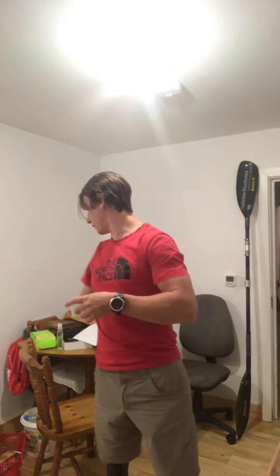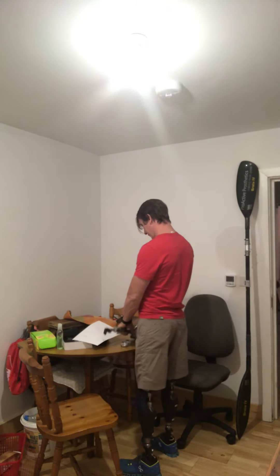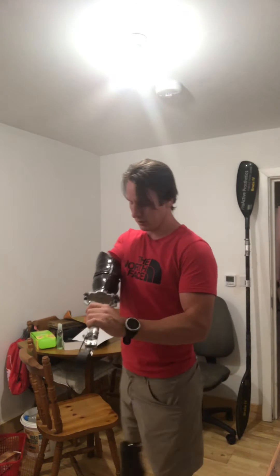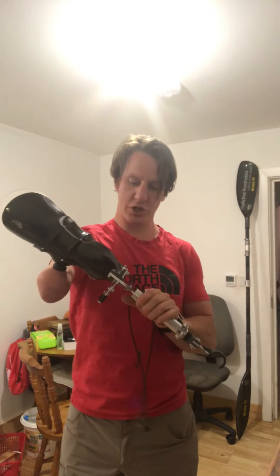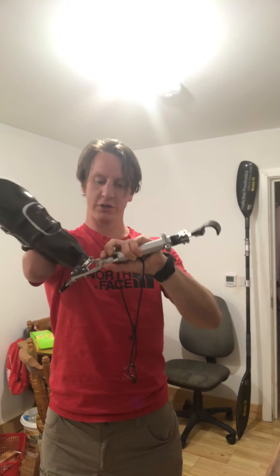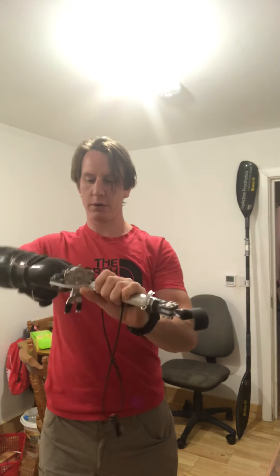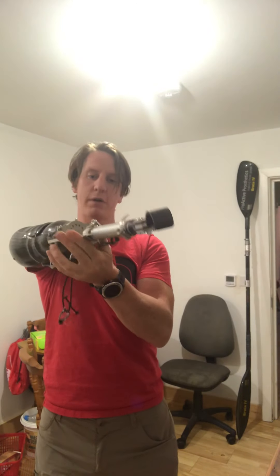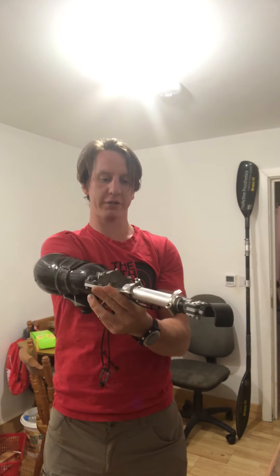Oli Blackworth had a look at this problem for me. He came up with this design. I've got a shorter version of the arm which I use for the gym and I can put different attachments into here. Oli created this elbow, forearm, and wrist unit. His idea was to use elastics and play around with those to recreate my tricep.